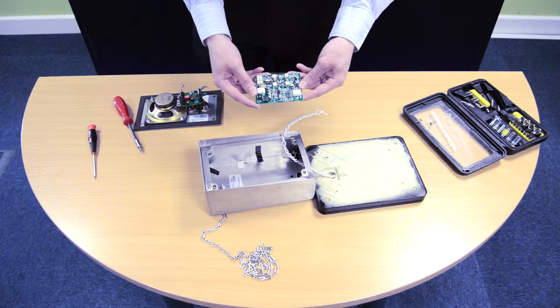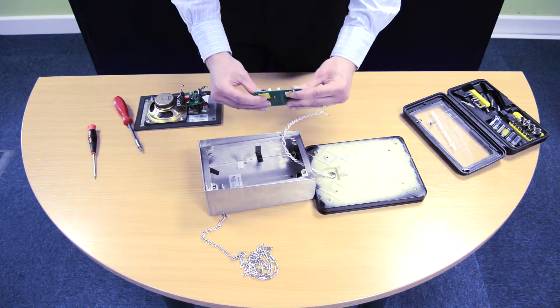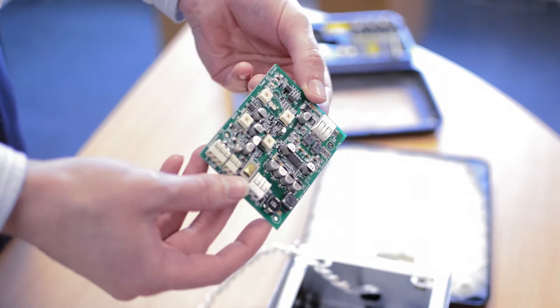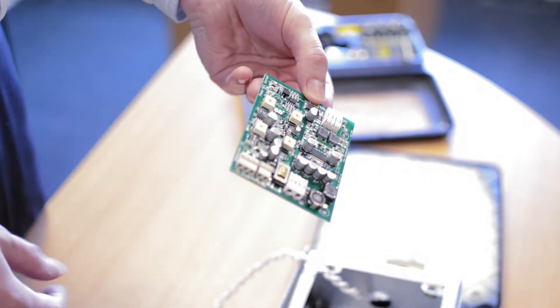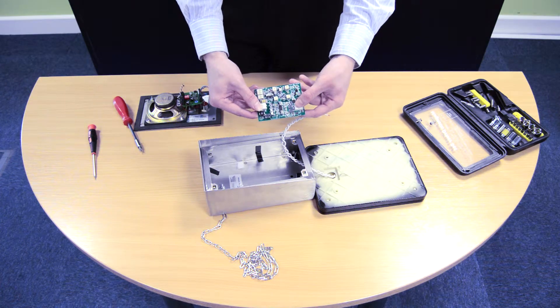As you can see, the HLS-DM1 is the most powerful compact hearing loop amplifier available on the market today. It's an extremely low profile and also very small in the XY footprint. It's the most powerful amplifier, with great voltage capability and also great current capability.